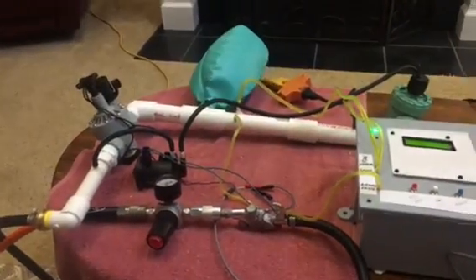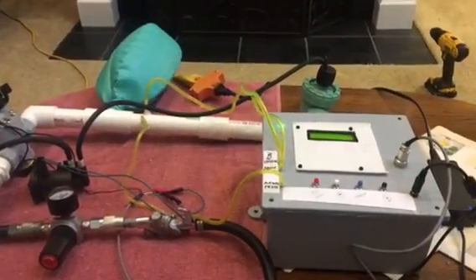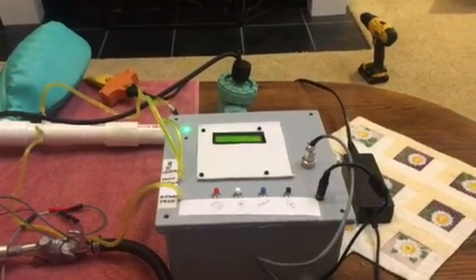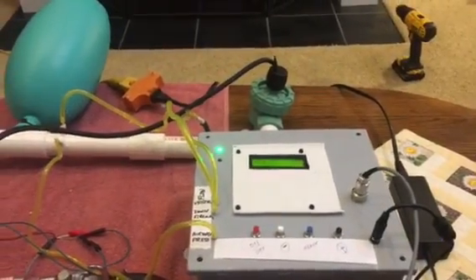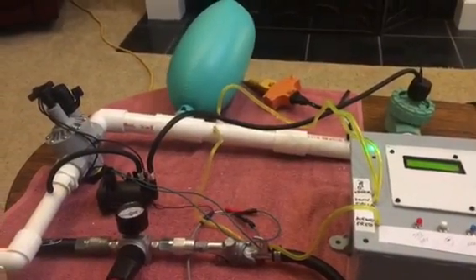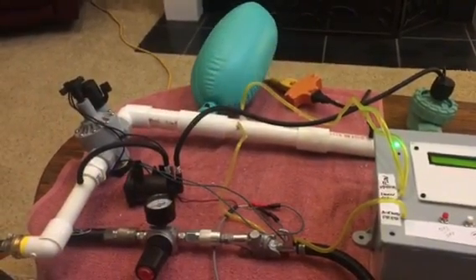This is the working system, the prototype that was constructed over the weekend. This is running with my code because unfortunately we don't have the final code fully integrated with BMP280. It uses my code to measure pressures and flows, but none of it is perfected yet.